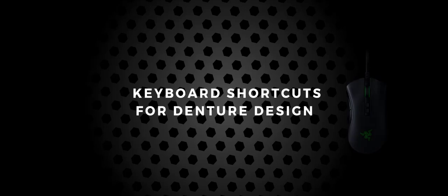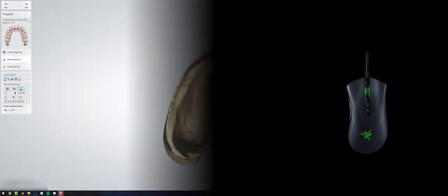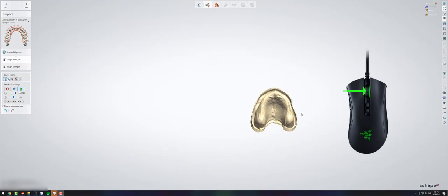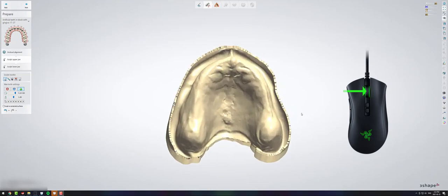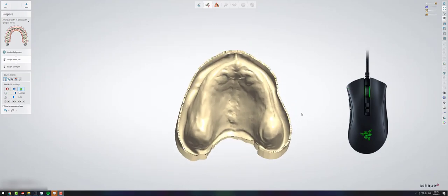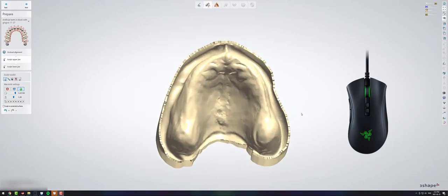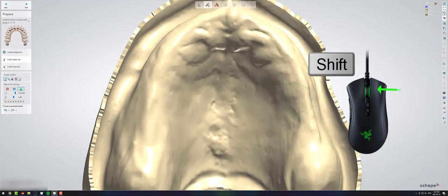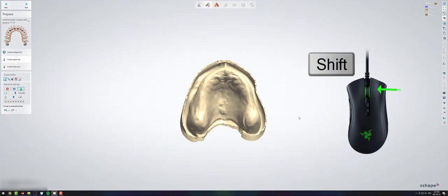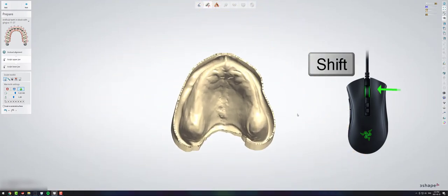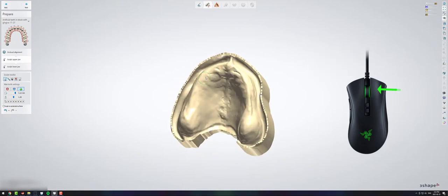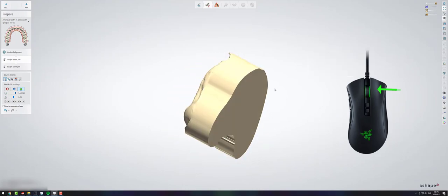So this is the mouse that I have. It has some extra buttons, which I like. First things first, if you roll the roller button, it will zoom your case in and out. If you click the right mouse button and hold shift at the same time, you can zoom a little bit smoother. If you just click the right mouse button, you can move your case around. The center mouse button moves your case around without spinning it.